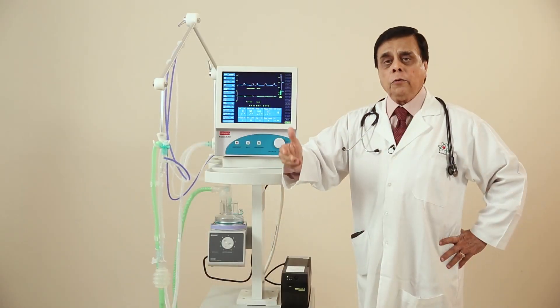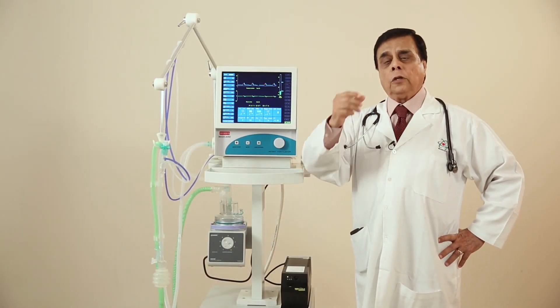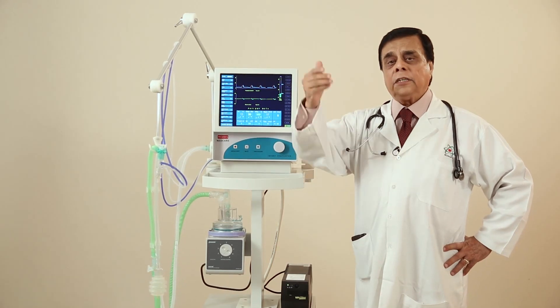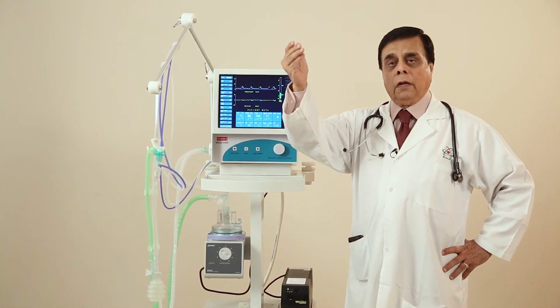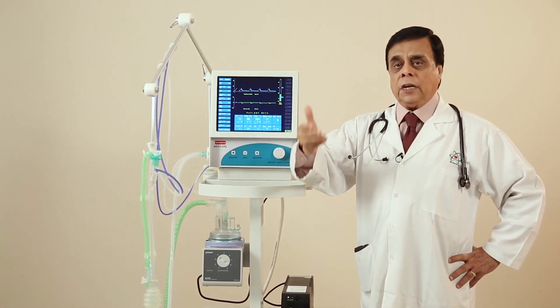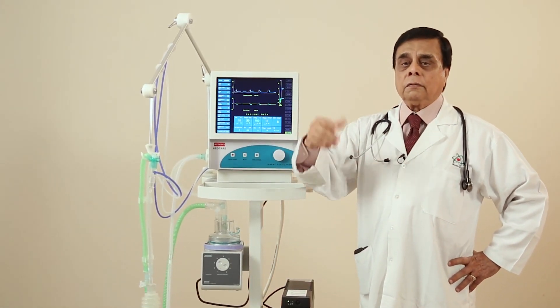Why pressure control? Because we do not know the lung characteristics. That is why we can start with a low pressure control system and then step up slowly, and it stands to reason.